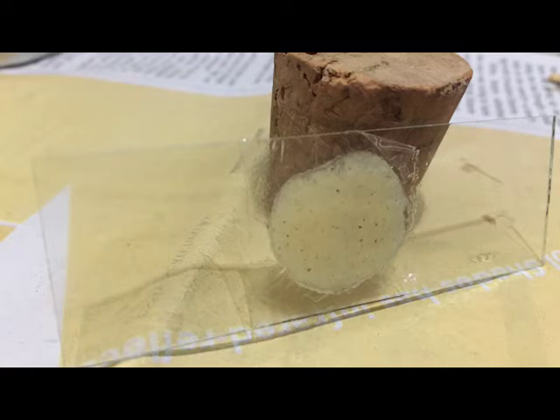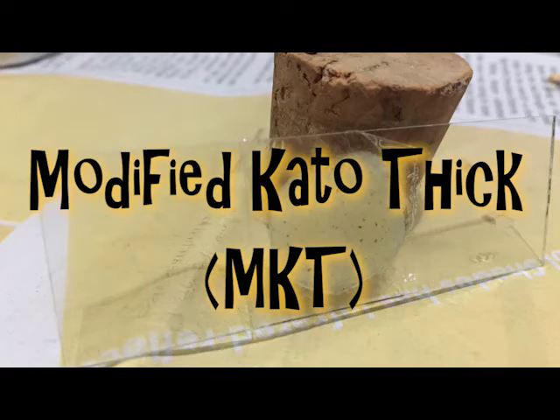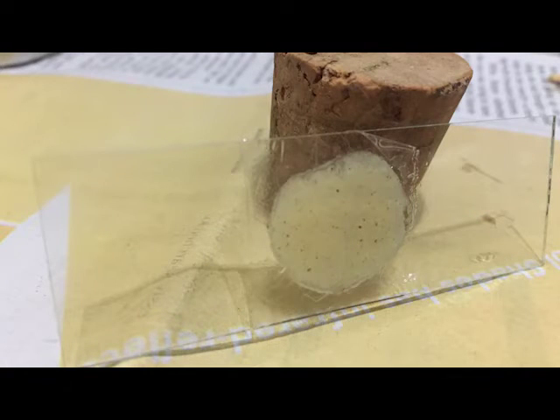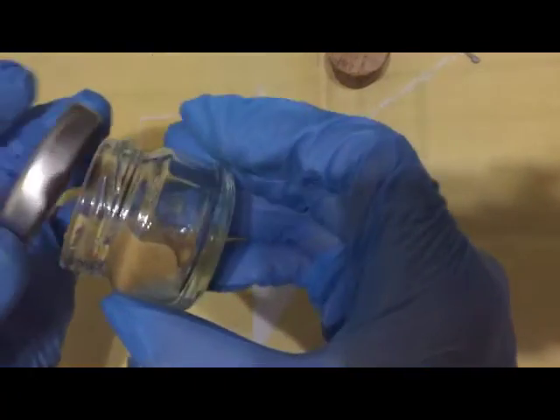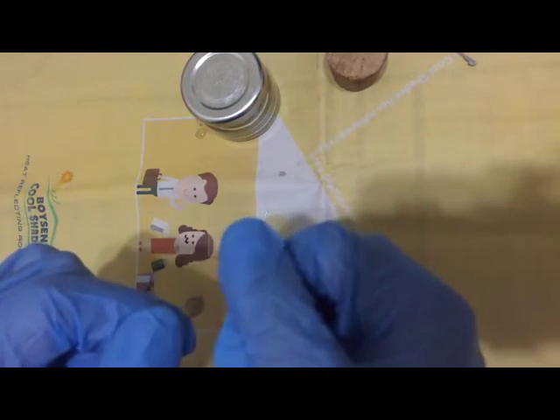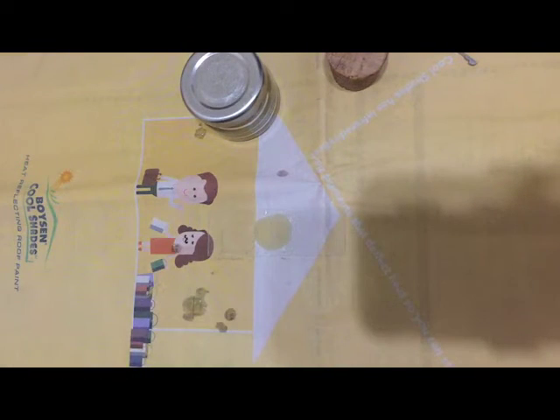Again, it is the Modified Kato Thick stool exam—differentiate it please from your Kato Katz exam. A final point in stool preparation, particularly the Modified Kato Thick stool exam, is the use of your 50 percent glycerin solution. Please try to know the two major reasons why we use glycerin.